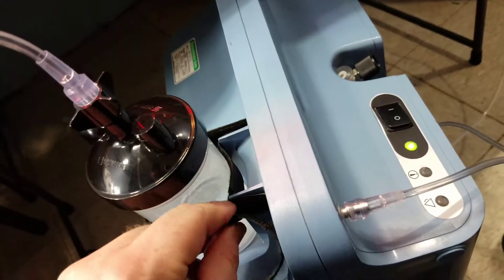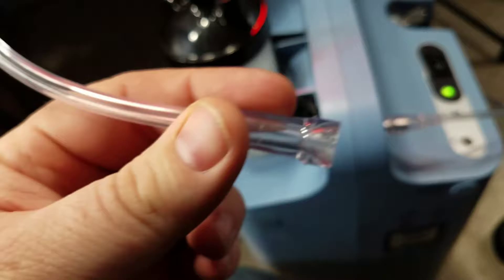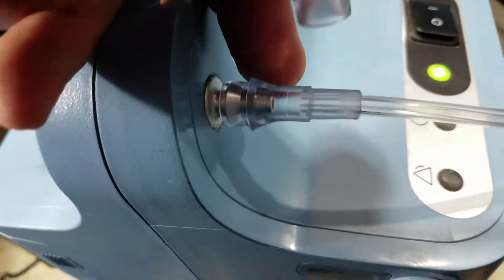This is an Everflow Q and it's got a little spot back here with a strap that you actually can just attach that'll hold the bubbler cup. This end, once we've threaded that onto the bubbler cup, is actually gonna go to the output of the concentrator. So I'm gonna disconnect the standard oxygen line and hook this into there.